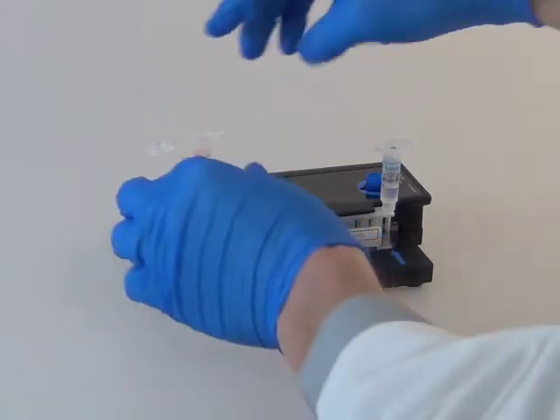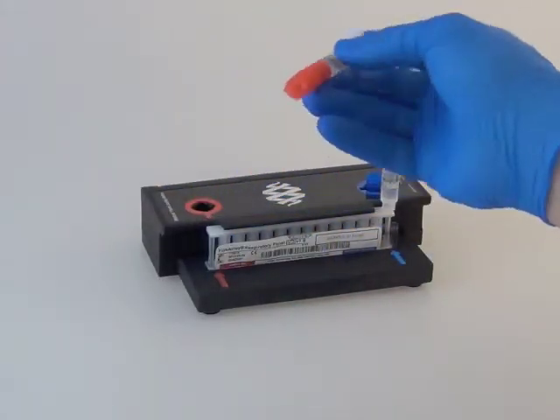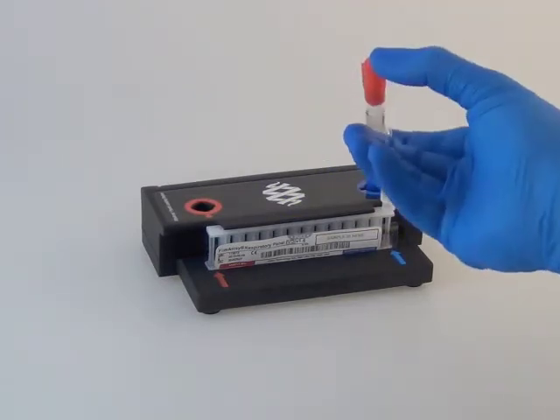Tightly close the lid of the sample injection vial, and mix the sample by gently inverting sample injection vial three times.